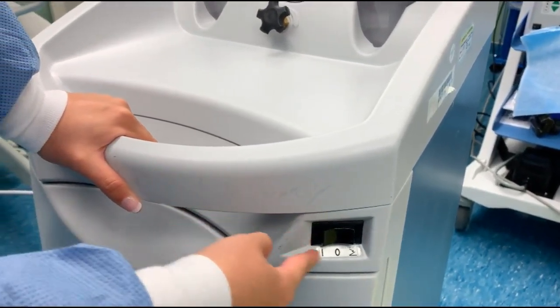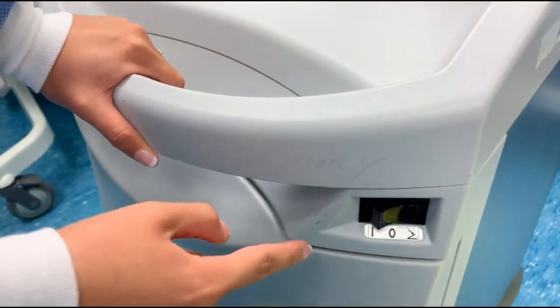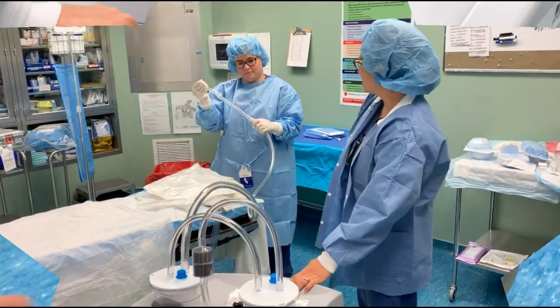To turn on your machine, go toward the eye and not toward — that is actually a foot pedal. If you go toward the foot pedal, nothing will happen. Just go toward the eye. And you are good to go!